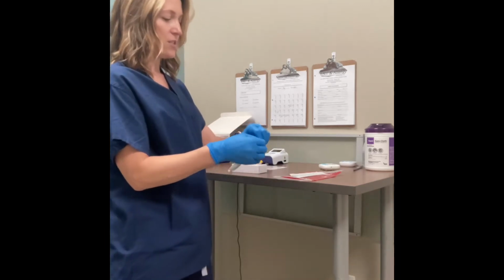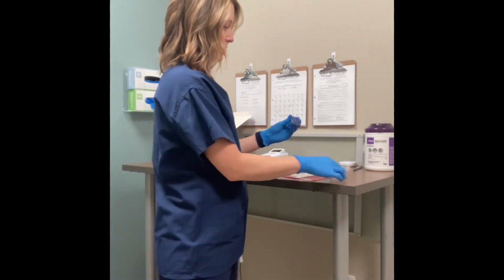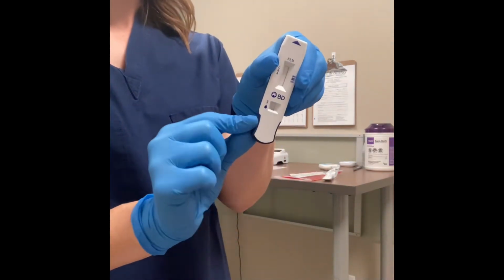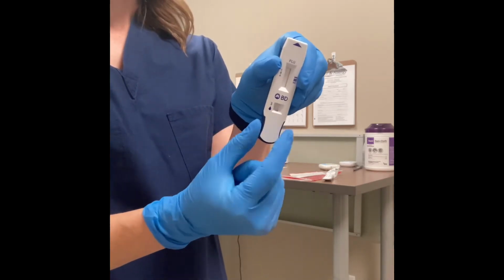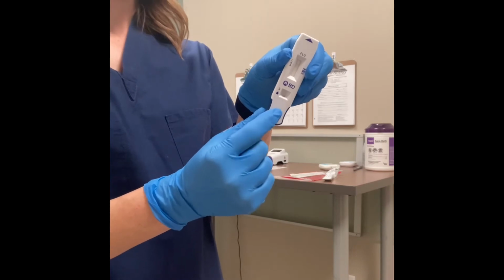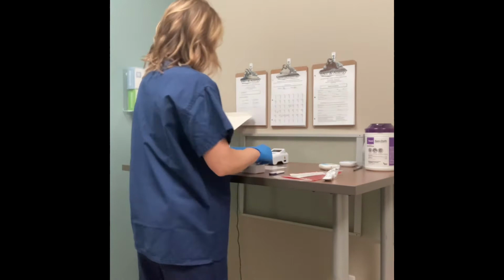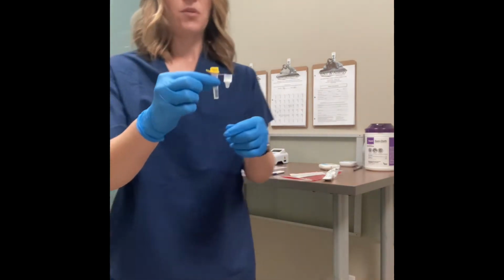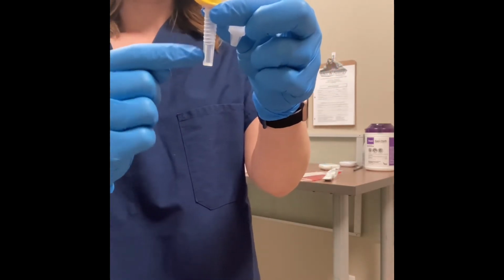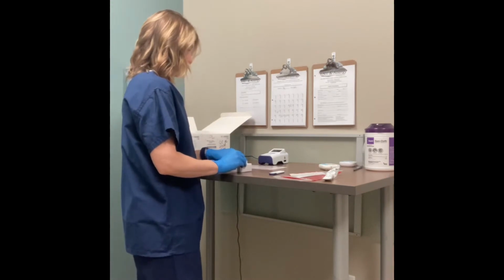So start by opening your sample cartridge. If you do have a patient sticker on the cartridge, you can see that there's a finger area. You can wrap that patient sticker for identification on this cartridge, or you can also put patient initials or a date on there or a date of birth on there. That would help you to keep it straight. And we also have a sample container. This one contains a filter top, and it also has some sample processing liquid in the bottom. There is no additional liquid to add into this one.